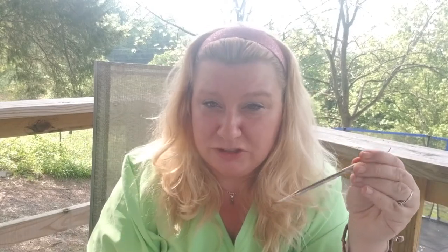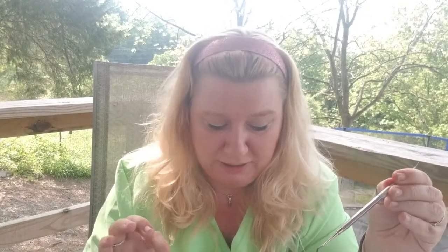It just depends on what they would like to use. When they're doing that and you have a lighter, make sure that you do not catch yourself on fire. Your gloves are not too tight, but not too loose. You don't have gauze around you. I would have a 2x2 wet gauze to take the plugger and wipe it off with, because the doctor's going to heat it up with the lighter or with a machine. Whenever you wipe off the instrument, wipe it off good with the wet 2x2 so you can get it off.